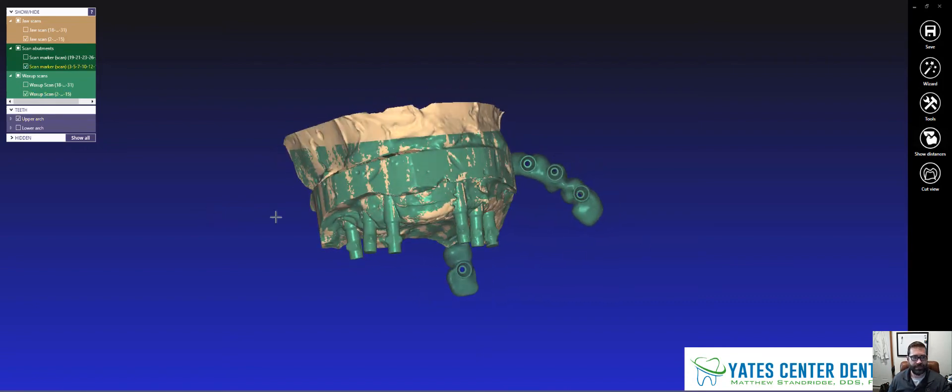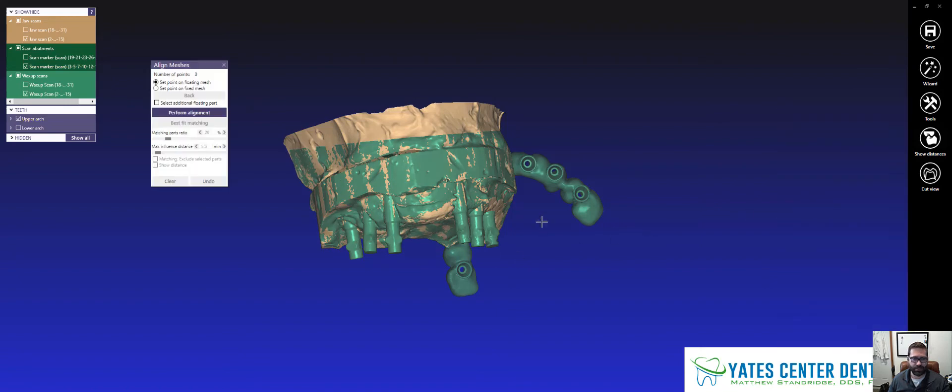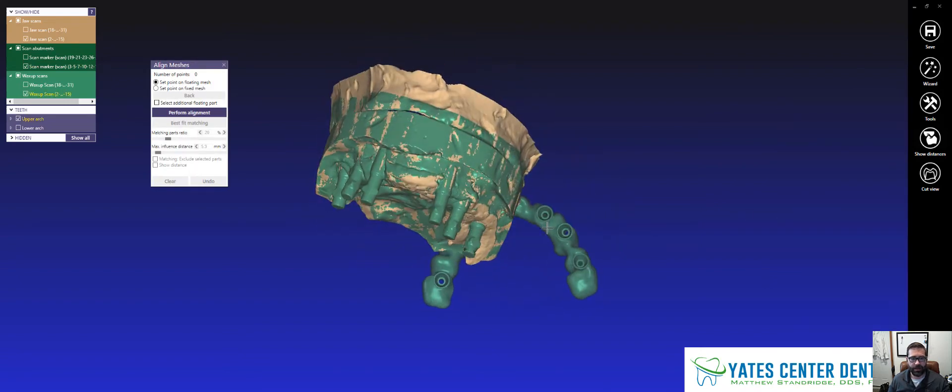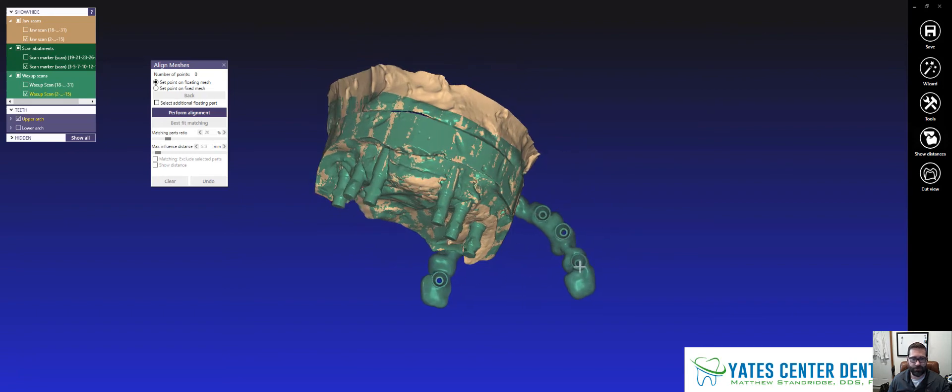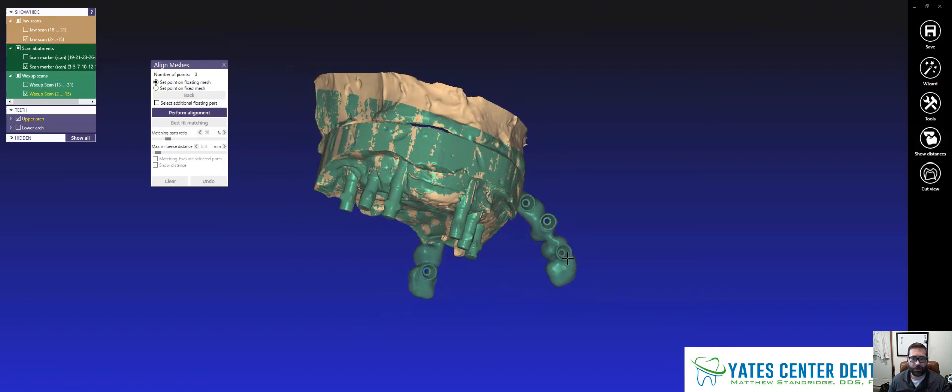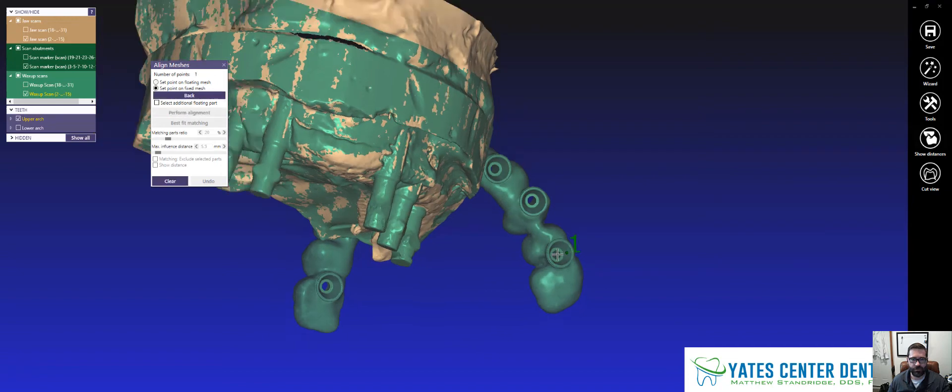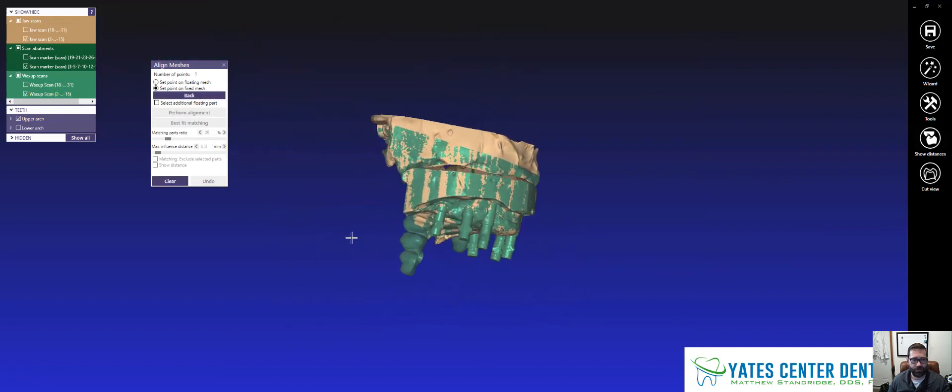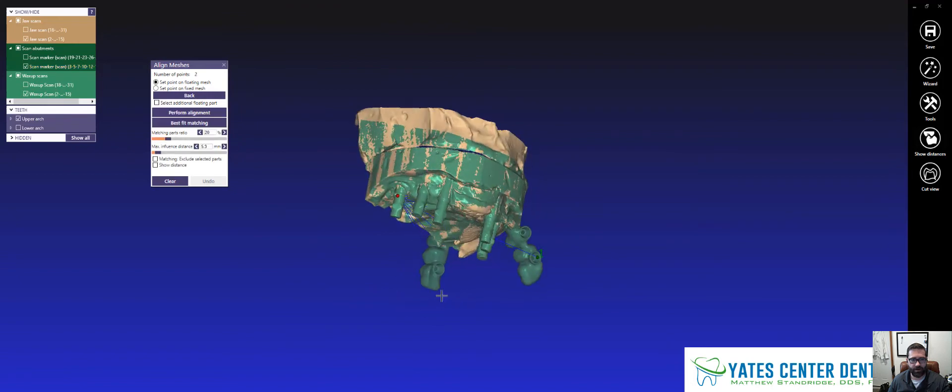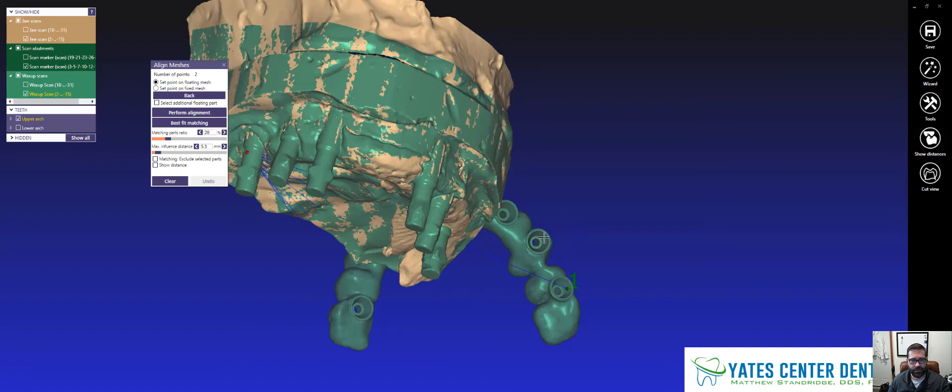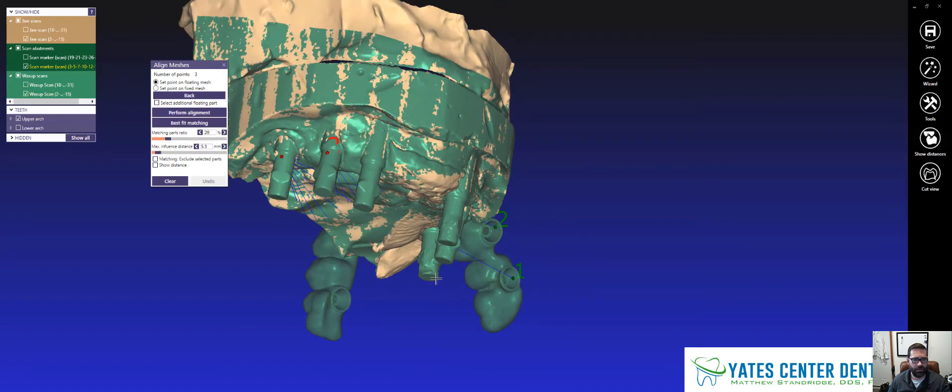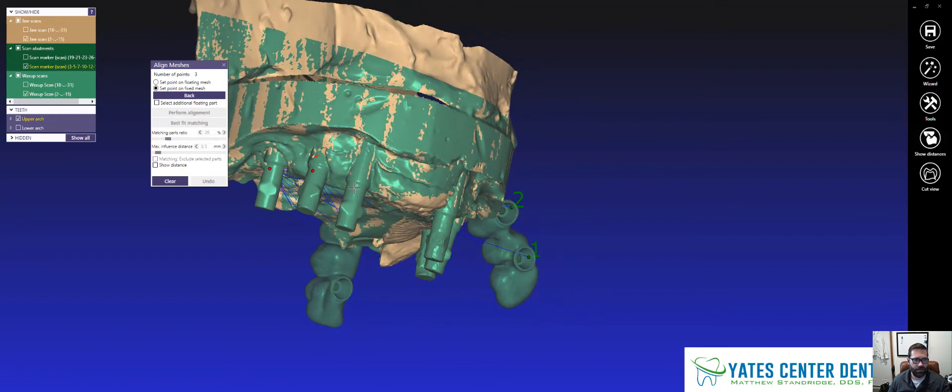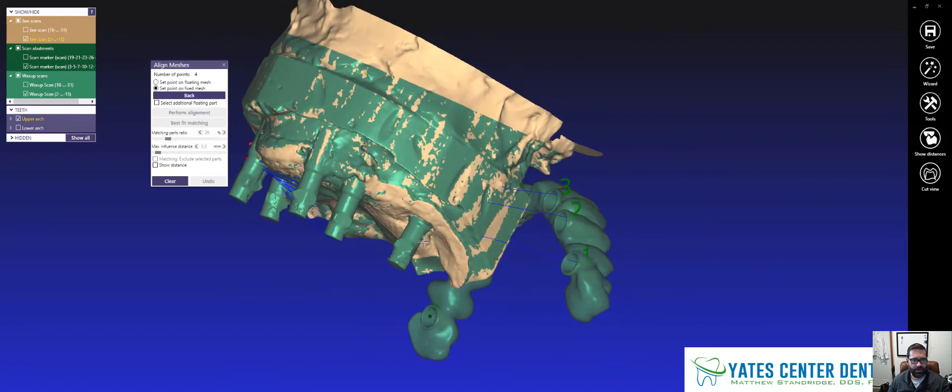So this alignment actually also works with negatives of each other too, or inverted scans of each other. So to relate this to this, we're going to do the exact same thing. I'm going to go to Tools and I'm going to go to Align Meshes. And now I'm going to pick basically on the outside of these three scan bodies I see here, or this MUA, because these are direct MUA. I'm going to hit kind of this internal surface hitting straight facial, and I'm going to hit the straight facial on the outside of this guy right here. I'm going to keep repeating that.